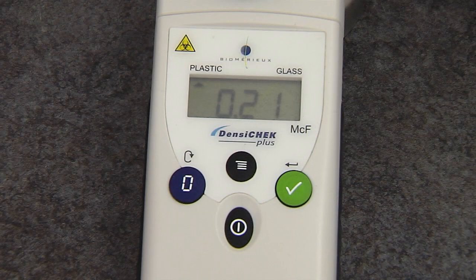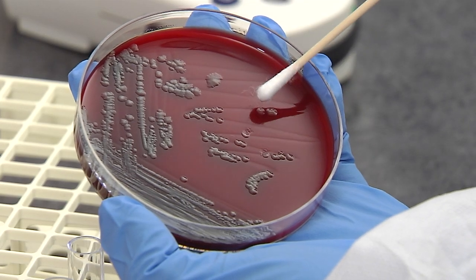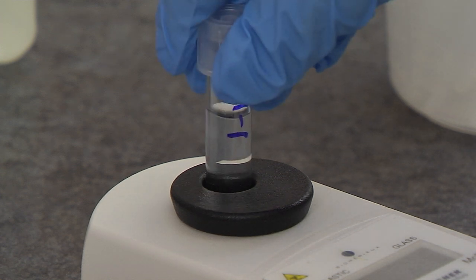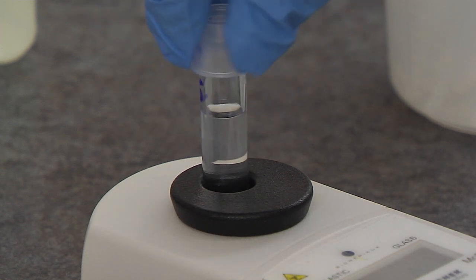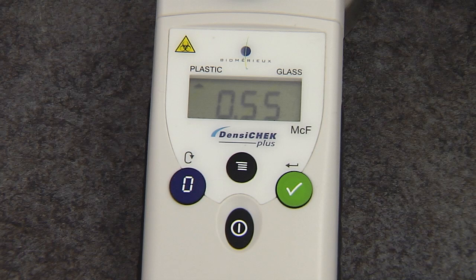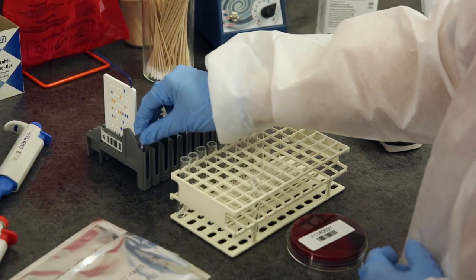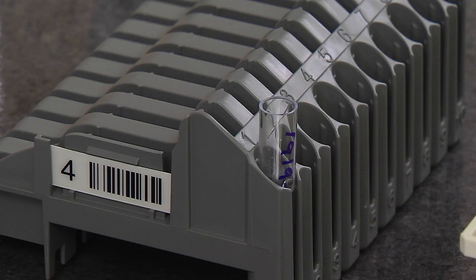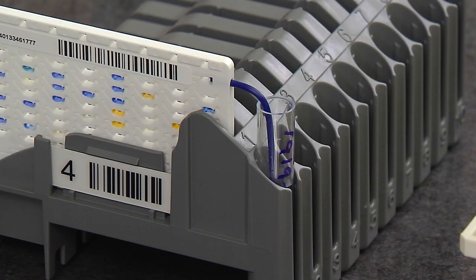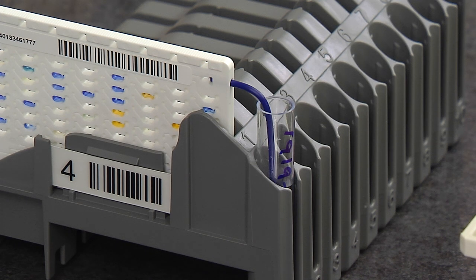If the suspension reading is lower than the required McFarland, add more organism and recheck the density. Once the density is within the correct range, place the inoculum tube in the well in front of the ID card. If no AST is to be set up on this isolate, turn the ID card and place the transfer tube into the suspension.